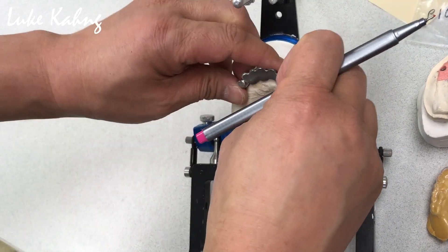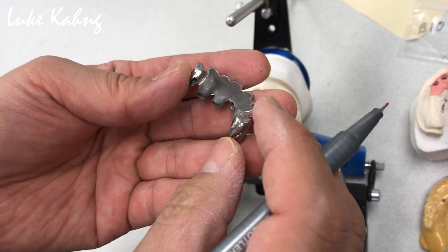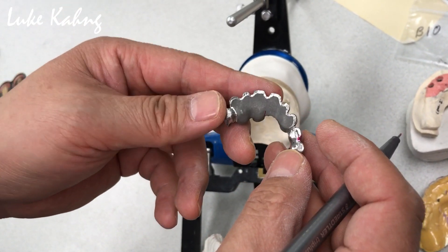Whenever you make the metal, just pick up the impression. Make a slight cut — it's not a problem, just a little bit. Or you can do a little polish before — it'll be great too. Lingual, that's awesome.